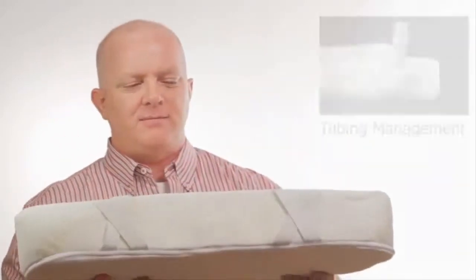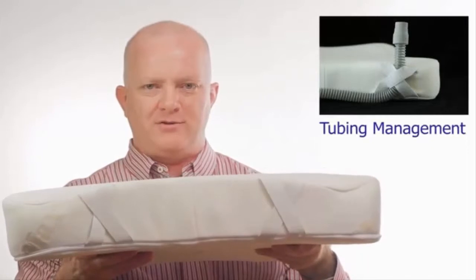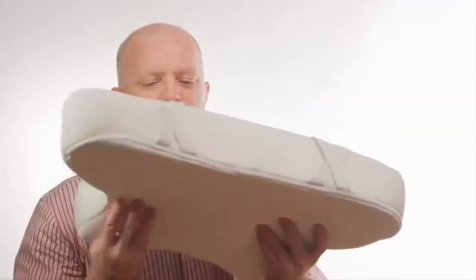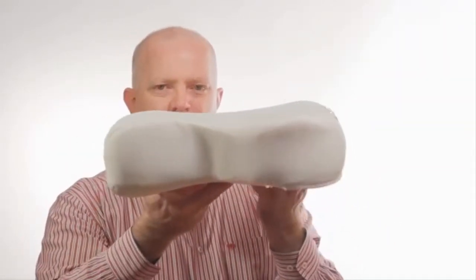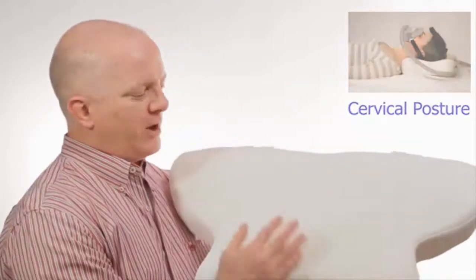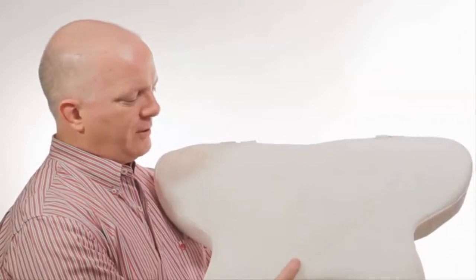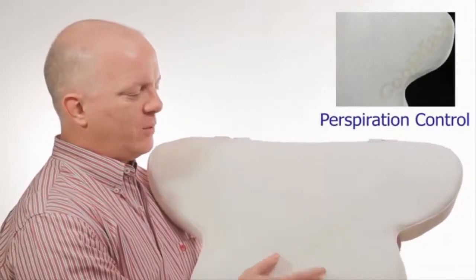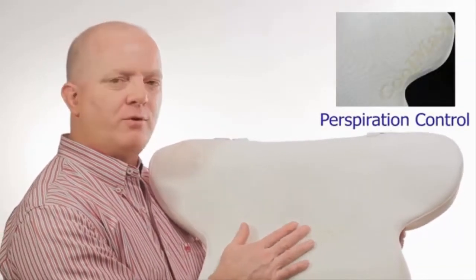In addition, these X-bands help manage the CPAP tubing. We have an orthopedic roll to protect the neck and ensure proper airway alignment, and the cover is a new revolutionary material called Coolmax which not only wicks away perspiration but helps control body temperature.